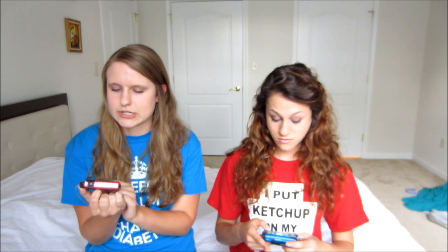On durability — how many pumps have you had to replace? This is only my second pump due to breakage, but that was my own fault. I was scuba diving and went a little too deep and that was the end of it, but they sent me one overnight. I've had mine for about seven years and I think this is my fifth or sixth one. It's just stuff like buttons coming off on the side or the battery pack cracking.